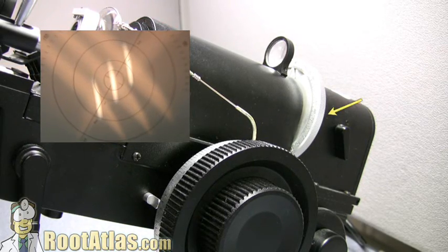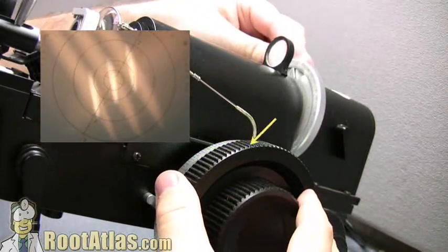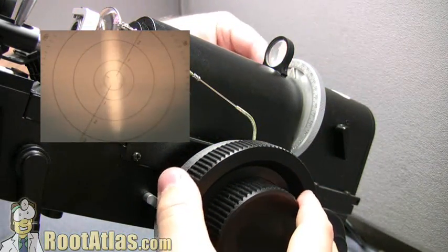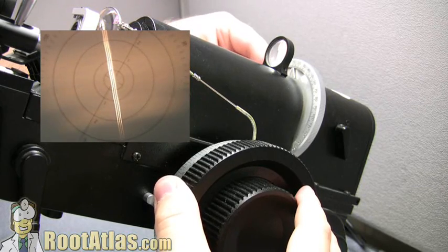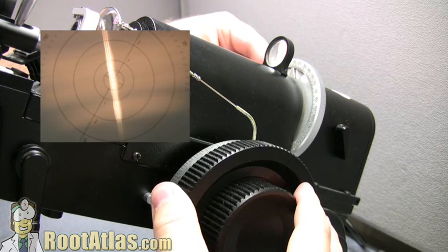There is an axis dial up here and a focus dial down here. You spin both of these, and the goal is to get the three small lines next to each other lined up and in focus.